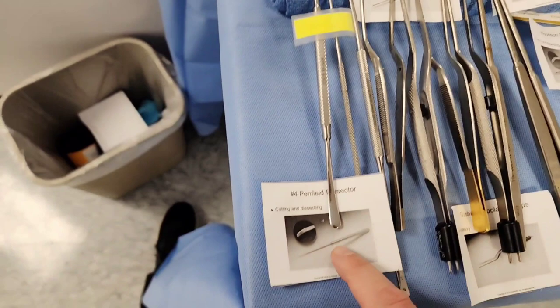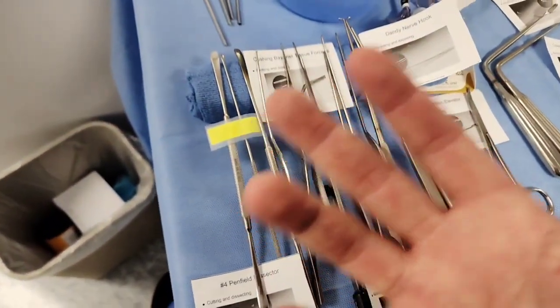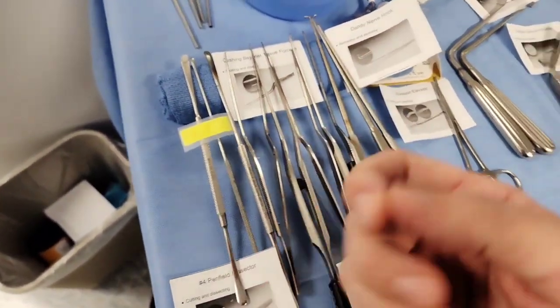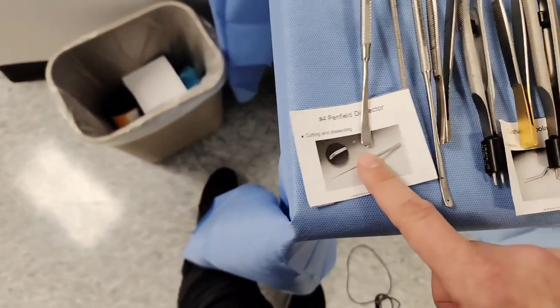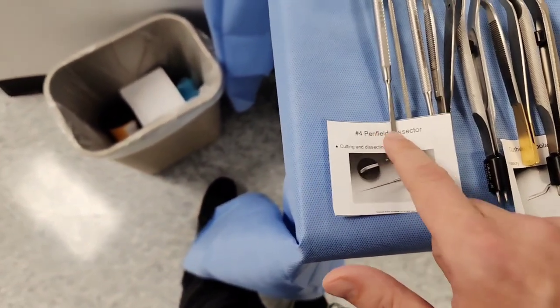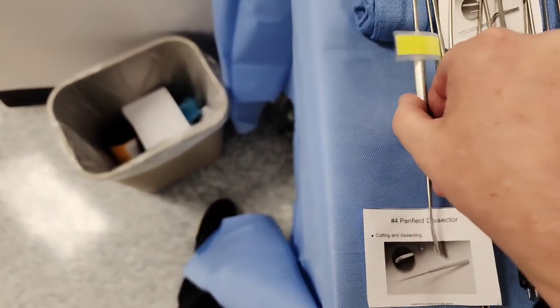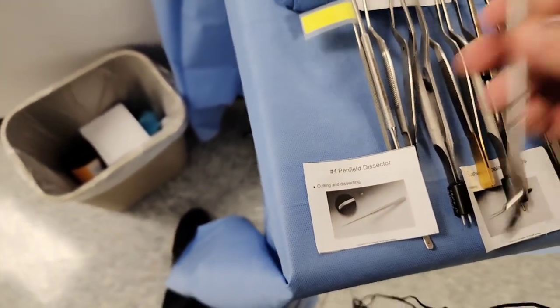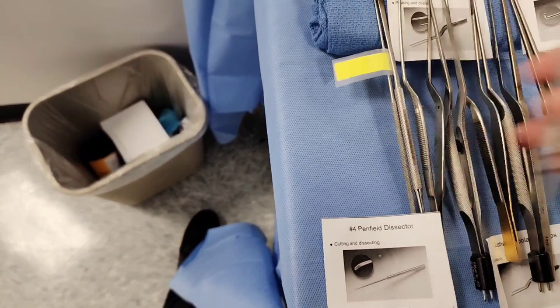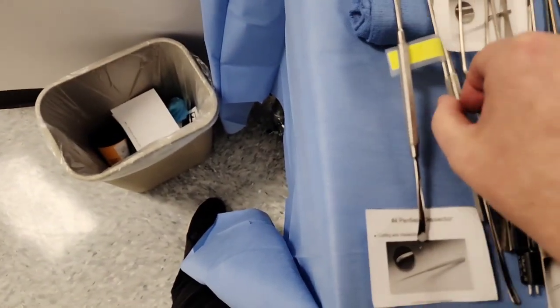We'll start here — this is called the Penfield. It's in the Penfield family: you have the Freer, Penfield 1, 2, 3, 4. In this case, this is Penfield 4. These are dissectors. In back cases, you can use these. Over here is a Freer — we use a Penfield 4, which is very small.